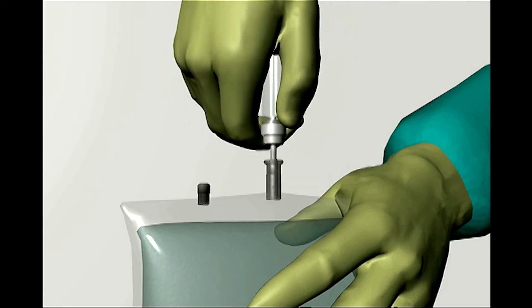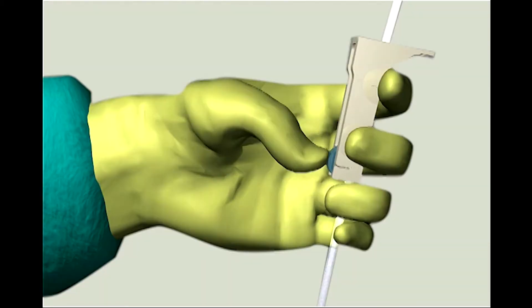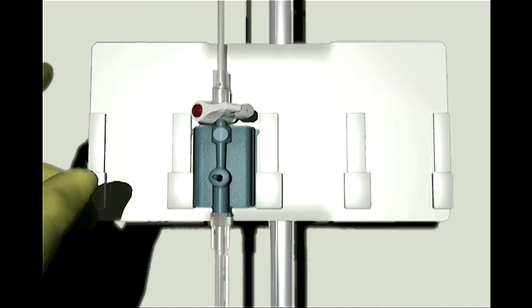Step 5: Spike the IV bag with fluid administration set, keeping the drip chamber upright. Step 6: Open the roller clamp on the IV set.